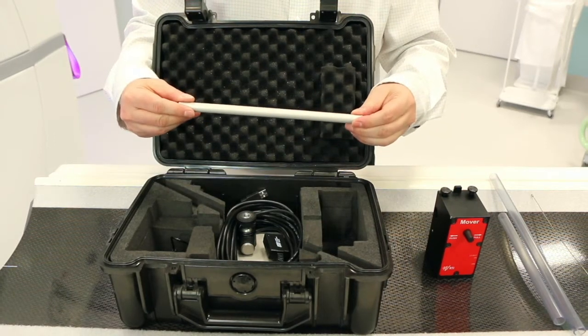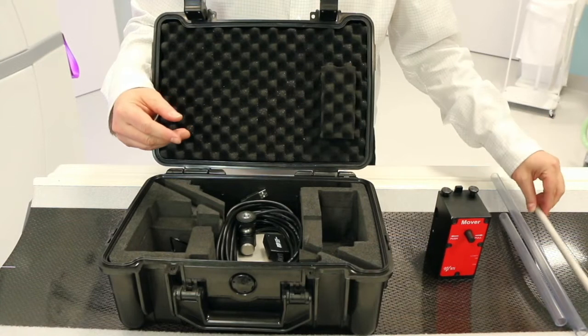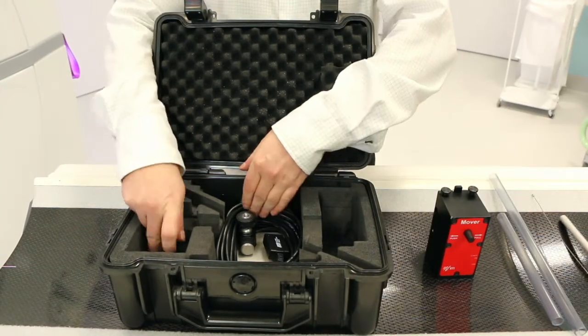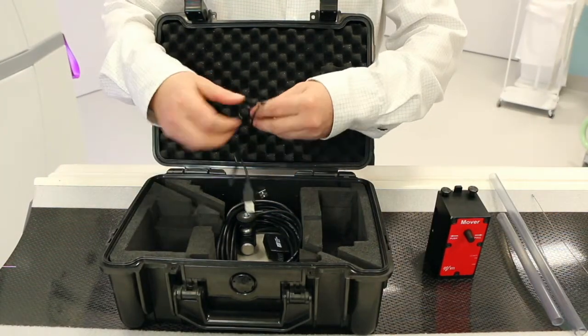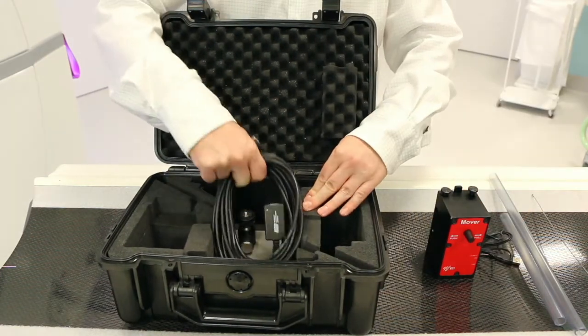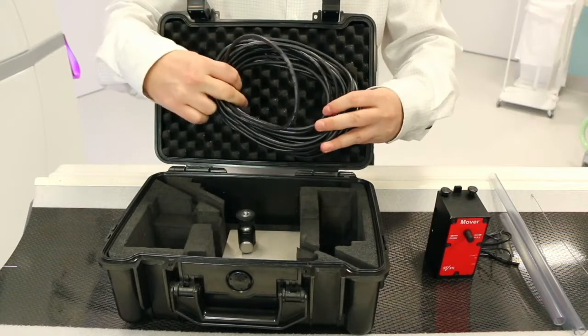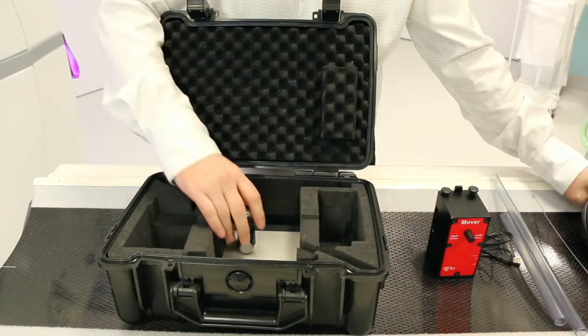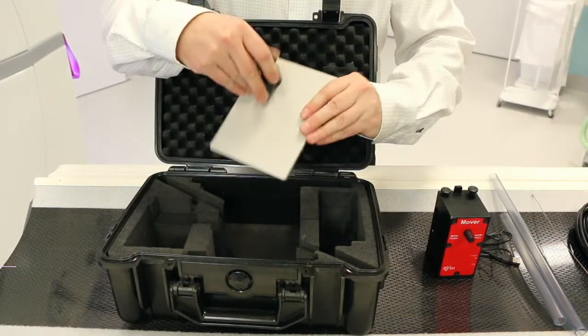Probe extension rod for free in air measurements. USB cable to connect to your laptop. USB extension cable. Base plate with flexible quick mount.